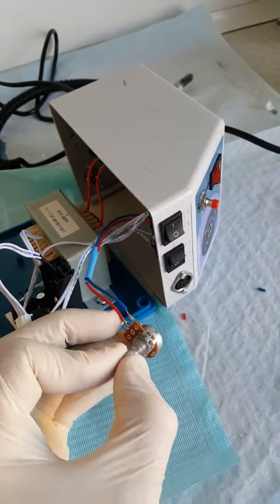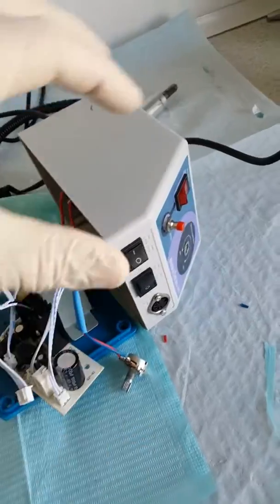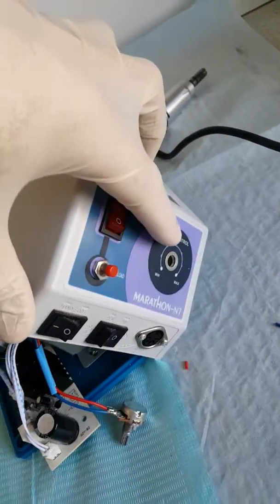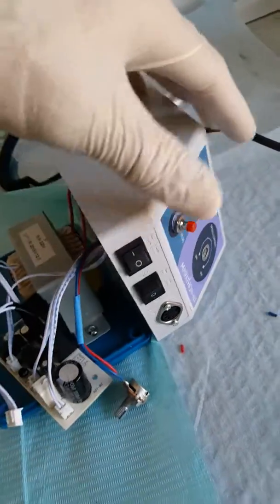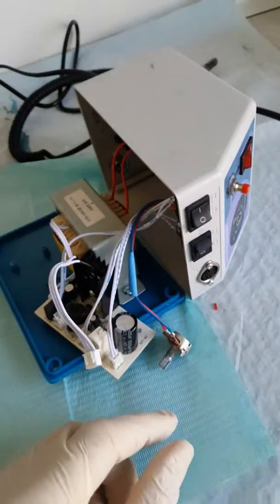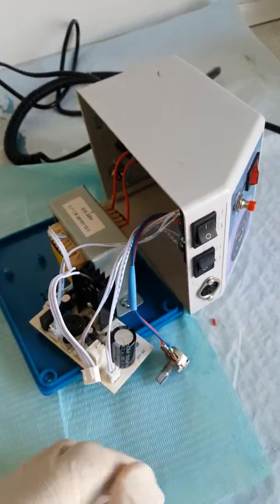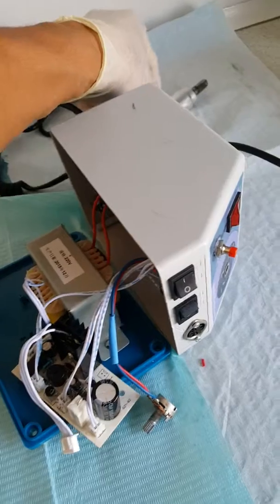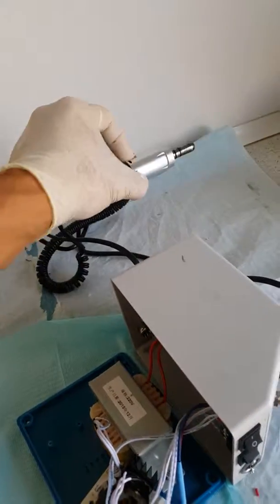I would rotate a potentiometer that fits here, but still it would spin always at the maximum speed with a handpiece.